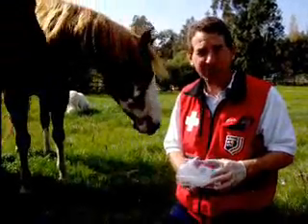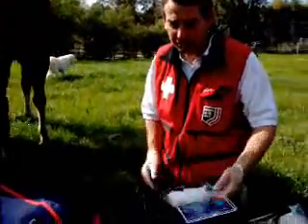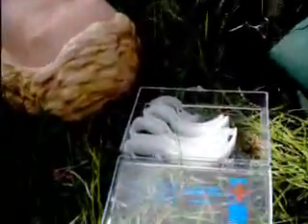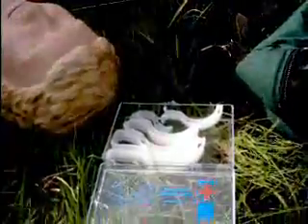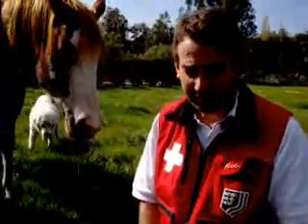Hi, I'm Robert. This skills video is about oral airways. We use an oral airway to keep the airway open anytime that a patient is unconscious. The reason for this is that the tongue is very easily swallowed and it'll stop the breathing.